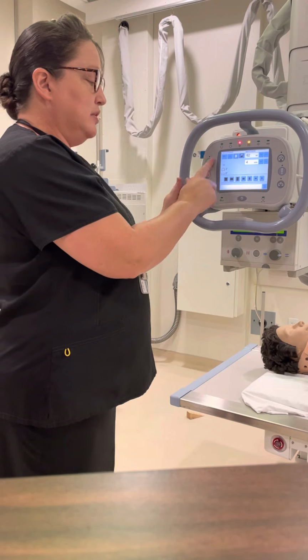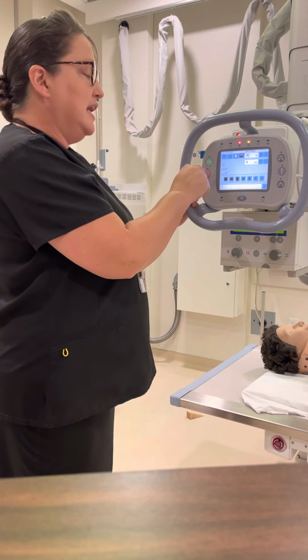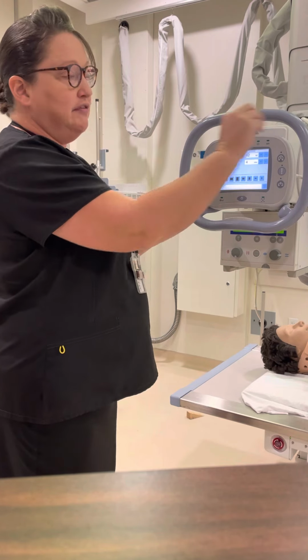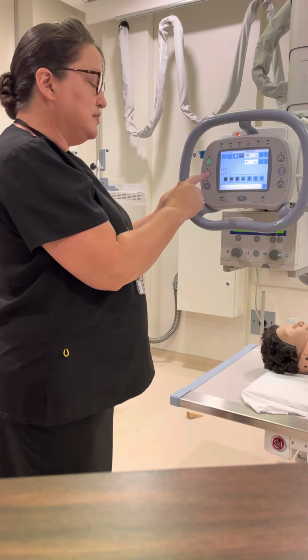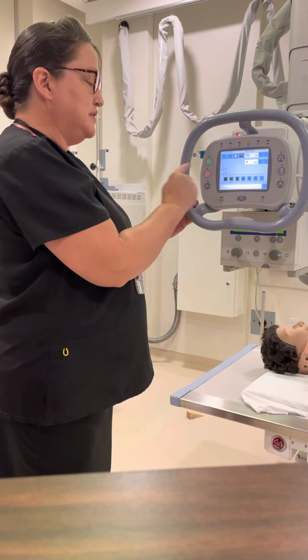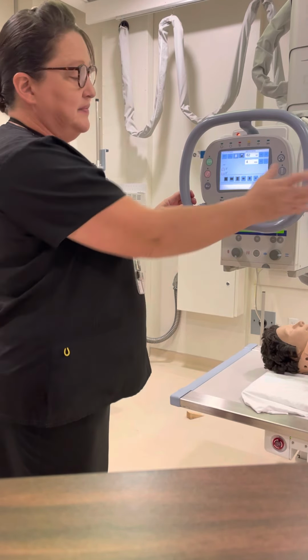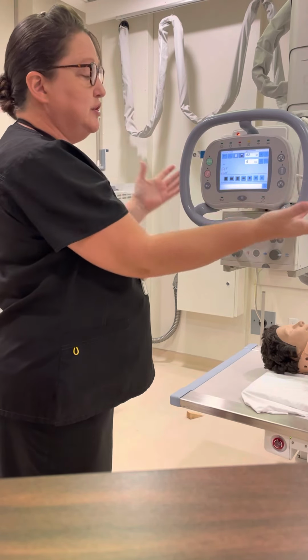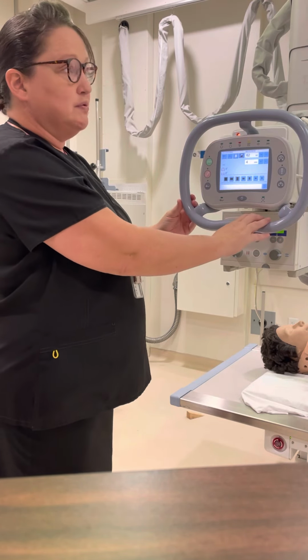All right, remember, the G in green is close to the H in horizontal in the alphabet, okay? And then the T in transverse is close to the P in the alphabet. So if that helps you to remember, up and down is blue. That's not really close, but for these two here, it might help you to remember which one moves it where.